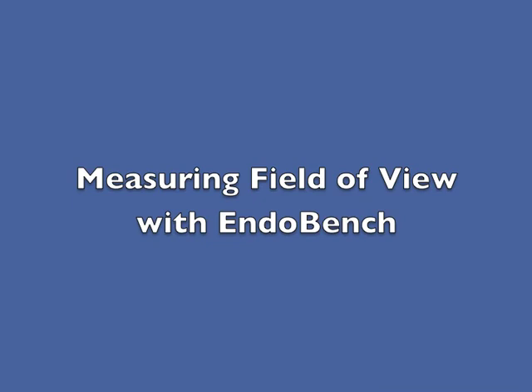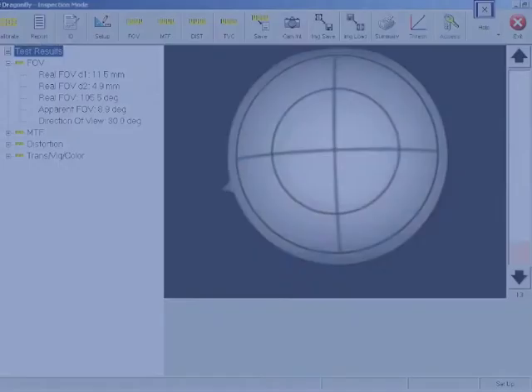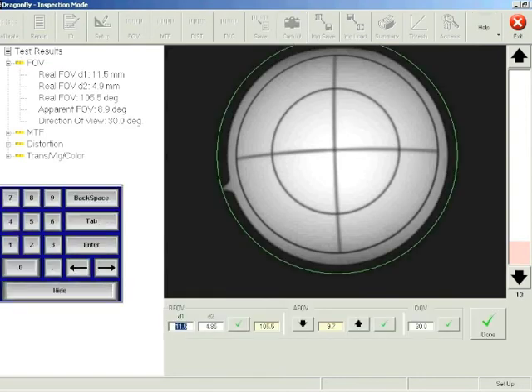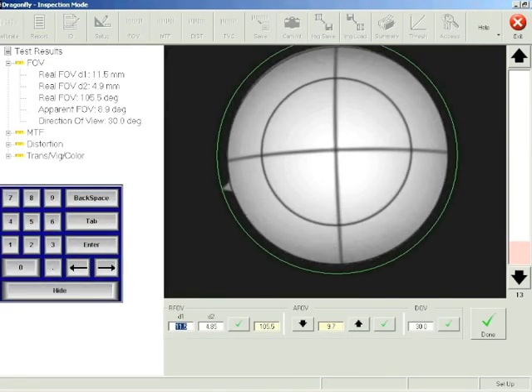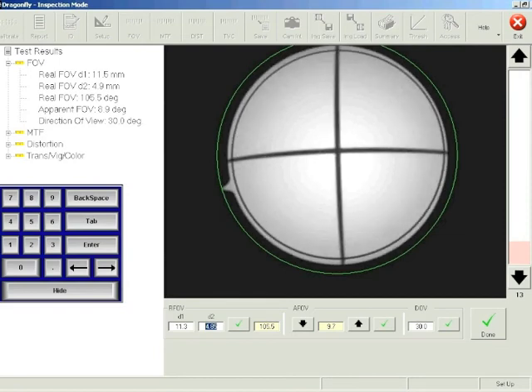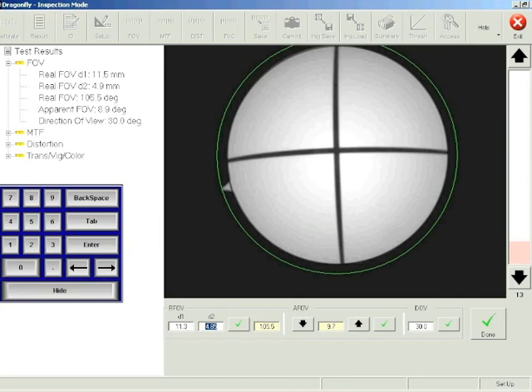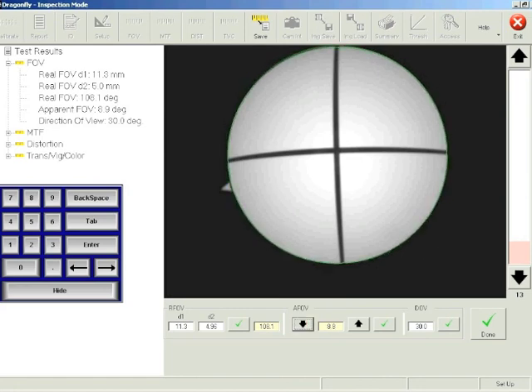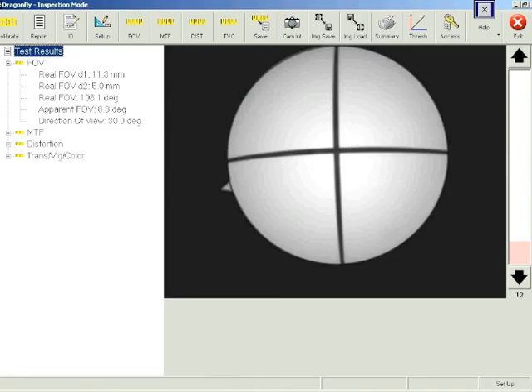We're going to see how easy it is to measure field of view and direction of view. Simply move the outside circle so that it is coincident with the outside of the field of view and record the position from the digital micrometer. Move the target in so that the inside circle is now coincident with the field of view and make another reading. Clicking the small green arrow calculates the field of view. To compute the apparent field of view, use the up and down arrows to make the green circle coincident with the outside of the field of view, and the apparent field of view is automatically computed. Direction of view is simply read off the goniometer table and input into the device.